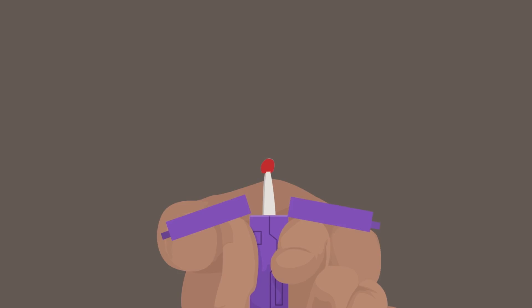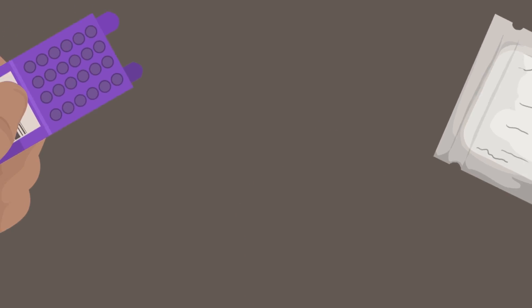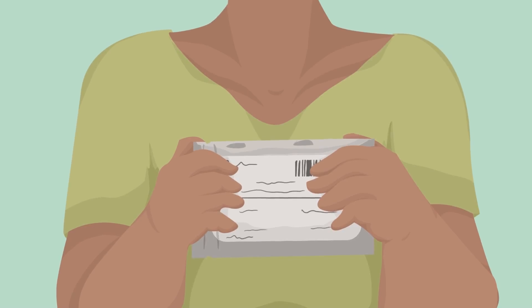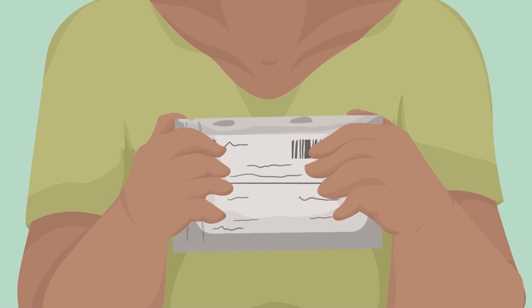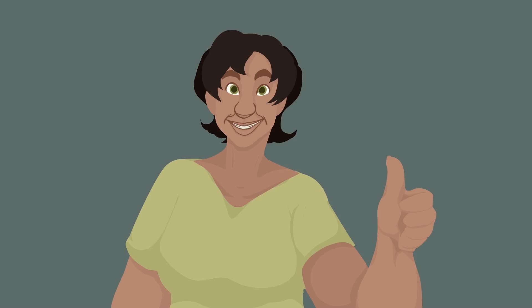Now that you've collected the two samples, you can close the Mitra cartridge device. Return the cartridge to the Mylar bag and seal it using the Ziploc feature. Ensure the Mylar bag is completely and tightly closed and allow the sample to dry stored in the bag at room temperature. Remember, the Mylar bag should still contain its desiccant sachet. And it's that easy!